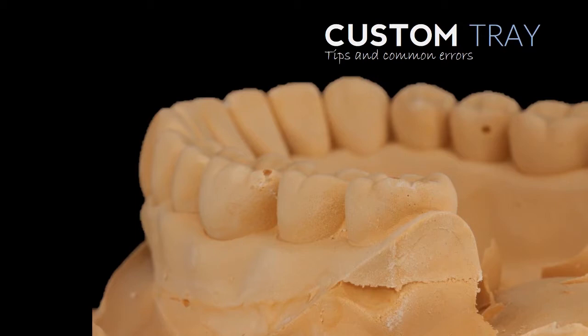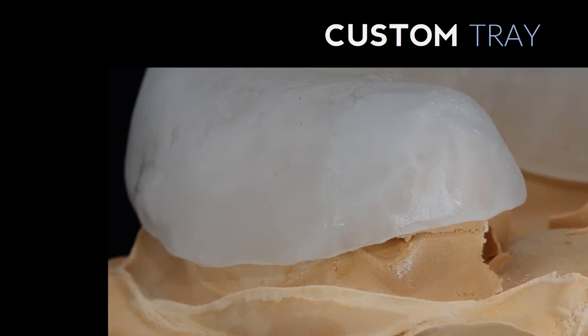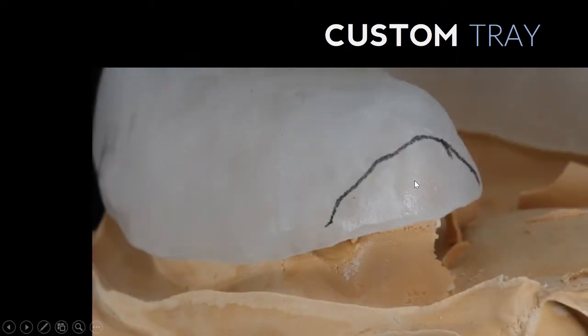So in order to provide enough relief in that area or room in that area, what we want you to do is trim that area so that it's not going to interfere.